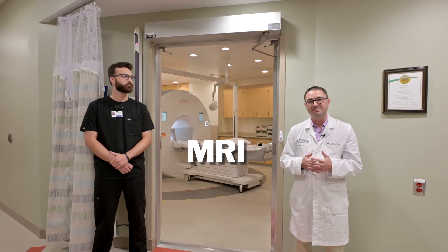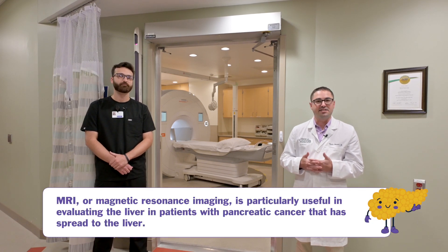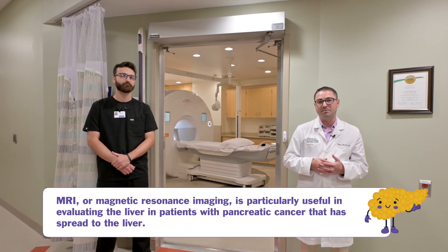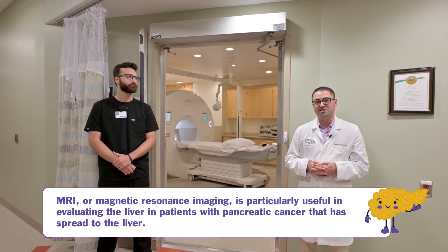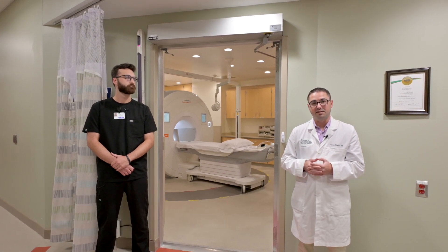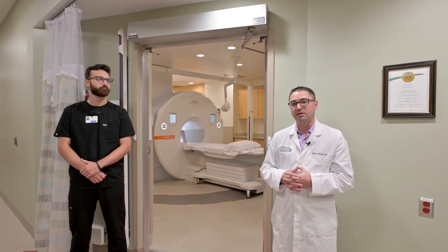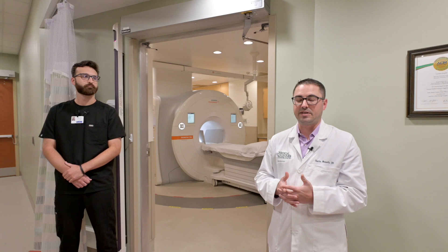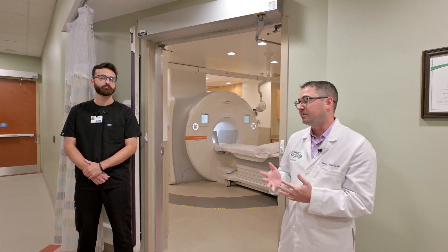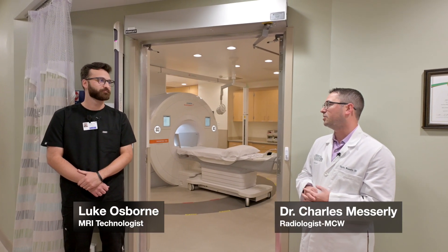Welcome to MRI. MRI, or magnetic resonance imaging, is a unique imaging modality that exposes body tissues to different magnetic field strengths in order to create the images needed to aid in diagnosis. With pancreatic cancer patients, MRI plays a unique role — not necessarily in the workup or staging of the primary tumor, but more so in surveillance imaging for potential workup of metastatic lesions, for instance in the liver. I have Luke, one of our technologists, here to explain what patients can expect on the day of scanning.